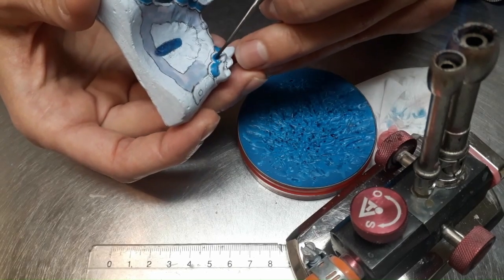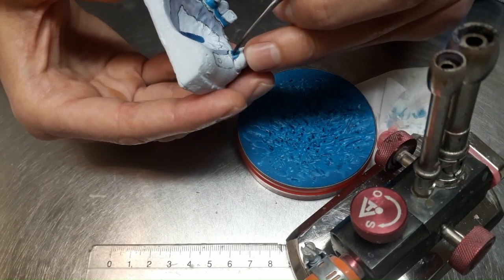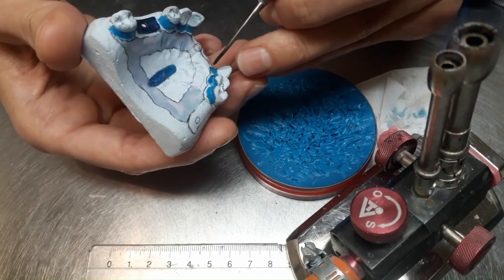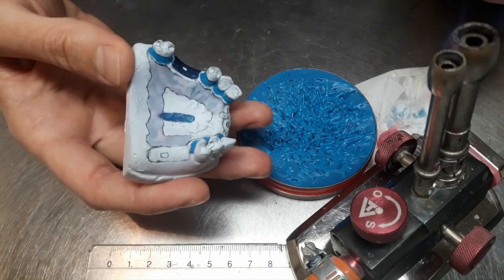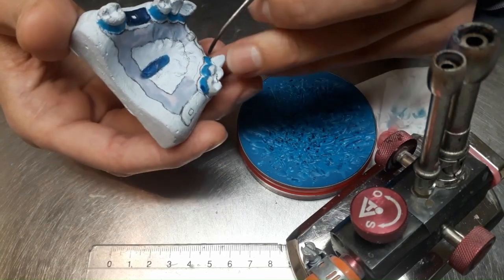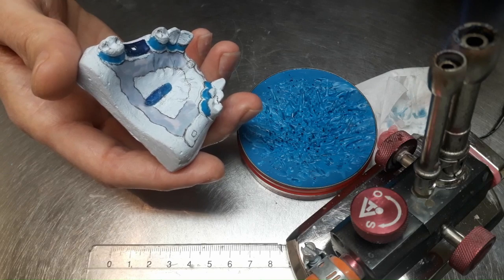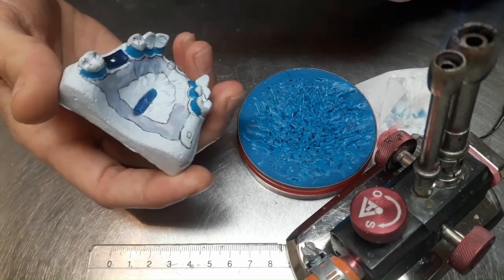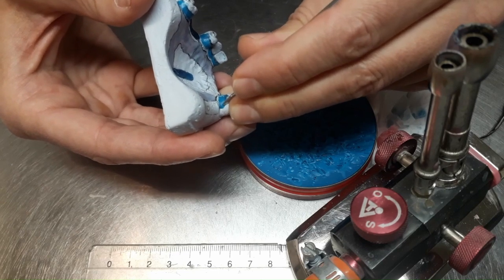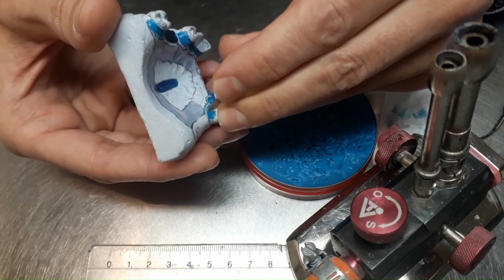So the difference here, comparing to the acrylic partial denture, is that here we use wax, not cement or plaster or lead, as we used in the acrylic denture. Because here we will duplicate the model, so the wax should not resist any technological processes, just there to modify the model and to allow us to copy the model in this shape. On the other hand, we need this model at the end, because on this model we will adapt the metal cast that we produce on the duplicate model.